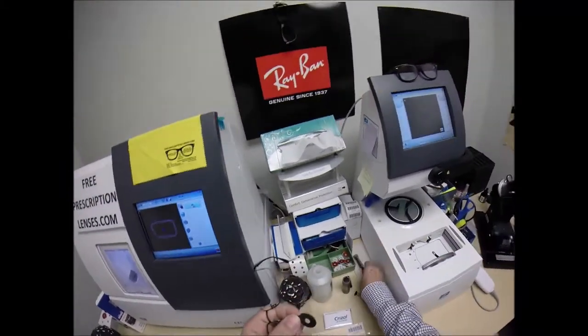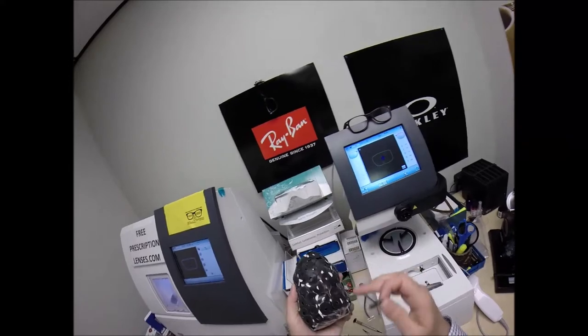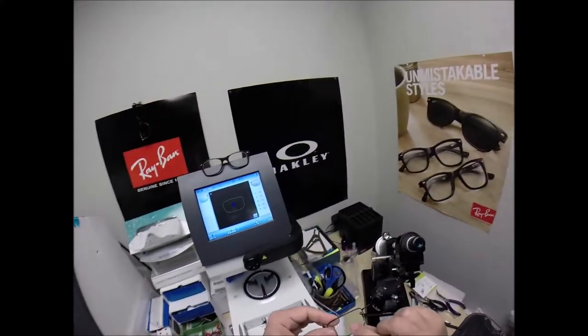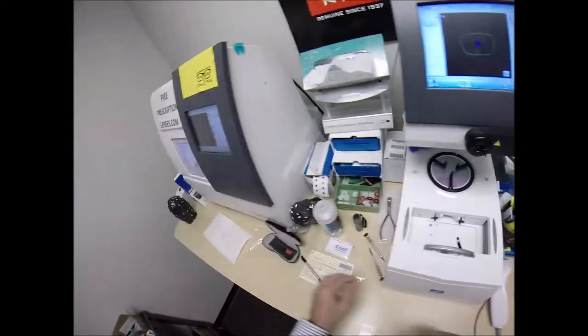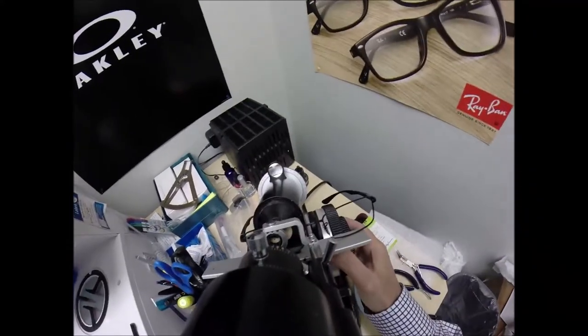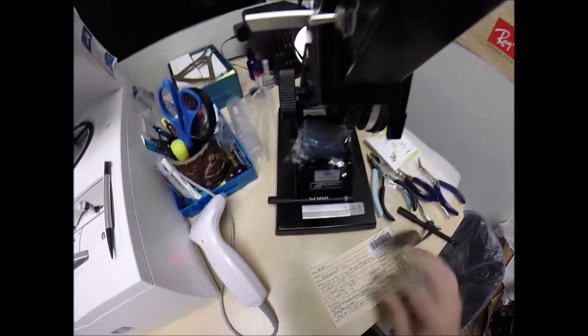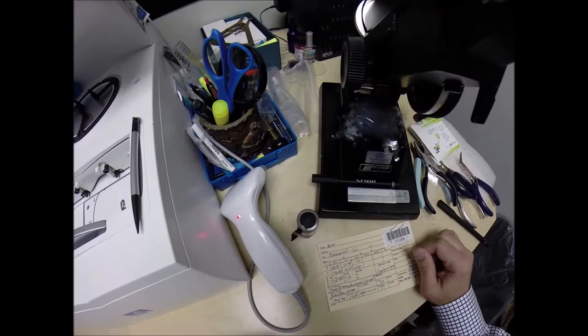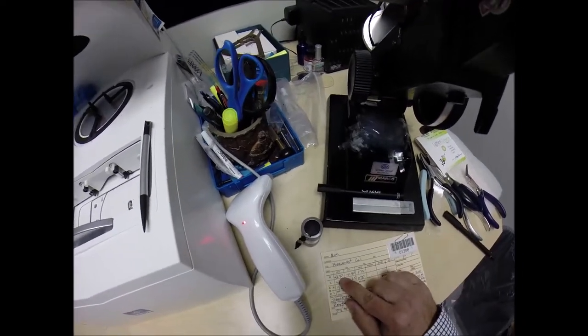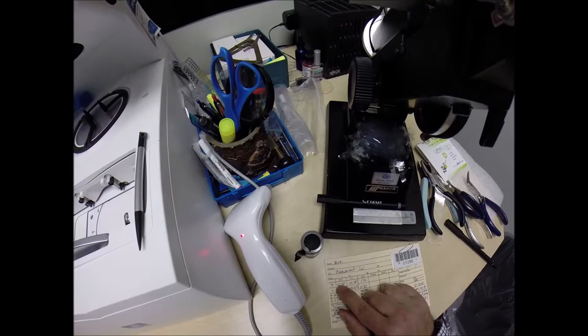I'm going to put it in above that black dot. Turn the axis wheel to 175. And check the power of your lens. I am getting plus 250. Exactly halfway between 2 and 3. That's because the unit of measurement we use in the optical world is called a diopter. Starting at 0 and going up in 0.25, also known as quarter step. You're on the 10th rung of a ladder. You are far-sighted. So you need two and a half diopters of magnification. That's why there is a plus sign there. Your lenses will magnify.